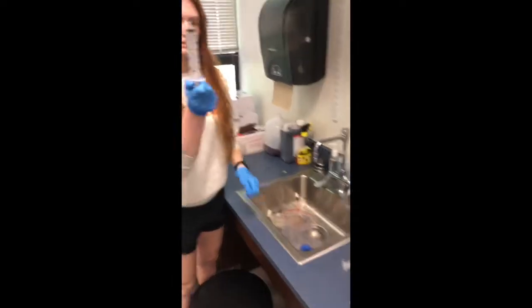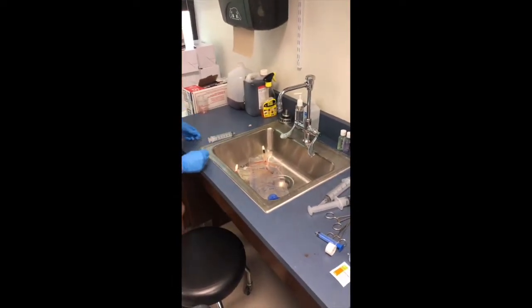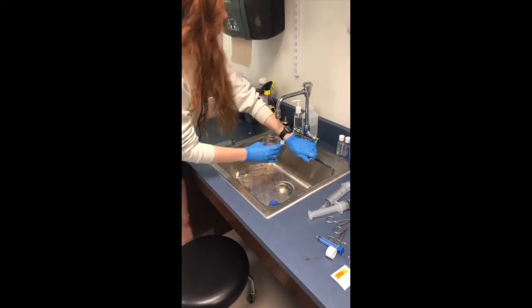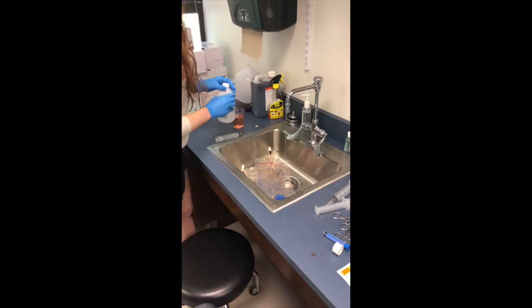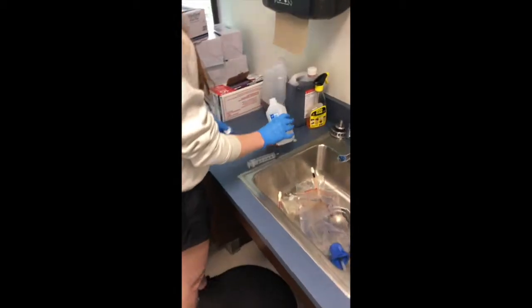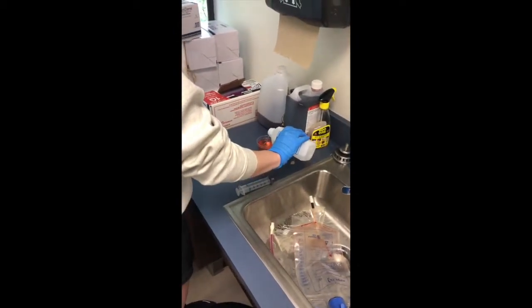You're going to take a syringe — I think it's a 30 ml, it may be 60, just take a big empty syringe. Fill up a container with just regular water from the sink, and then add alcohol to it. We really don't want mold to grow in these tubes, so it's important to just dump a bunch of alcohol in. If you can't smell it, you didn't add enough.